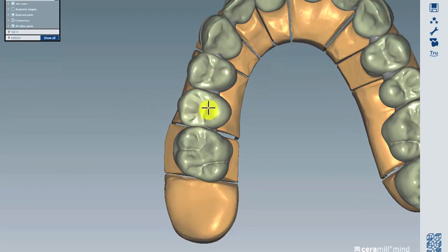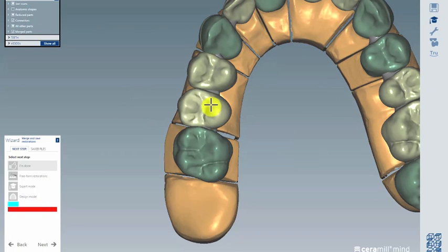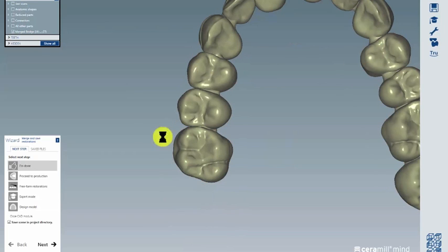That's the first step. Now I click on the wizard and start it again. The wizard will merge the parts, and on those merged parts I can attach the PONTIC 1.7. So let's go!